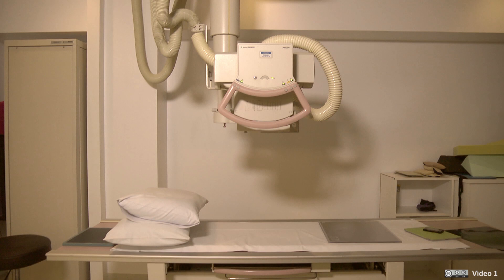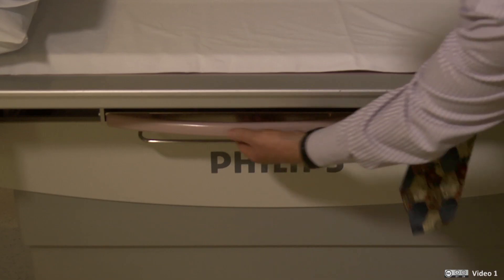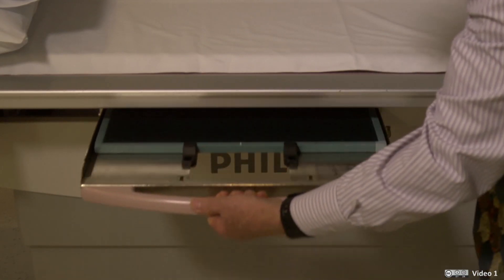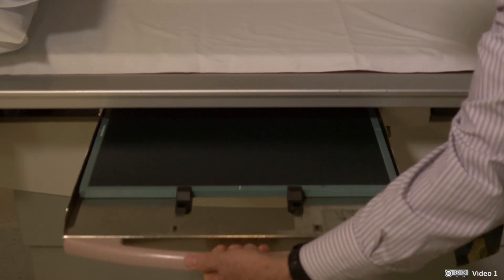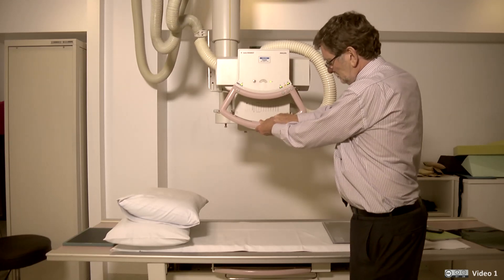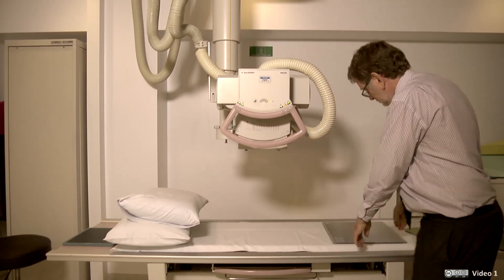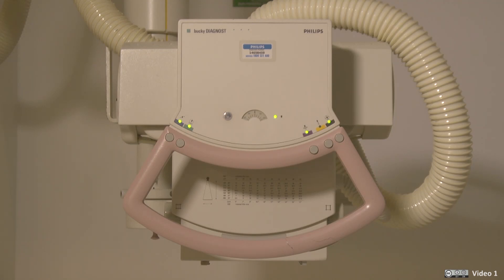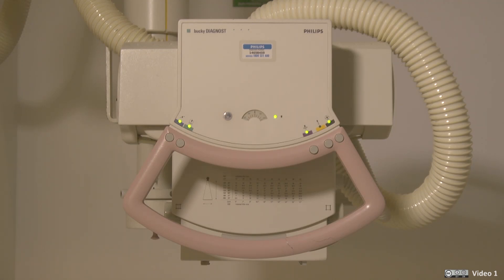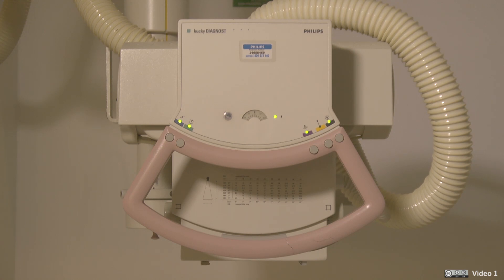We will start with an x-ray table where the patient is lying on a movable floating top table, with the x-ray tube above and the detector system cassette in the bed under the patient. The unit containing the x-ray tube can be moved to give the correct positioning over the bed. Modern systems are very flexible — this one can be moved to the end of the bed for imaging a wrist with the patient sitting on a chair.